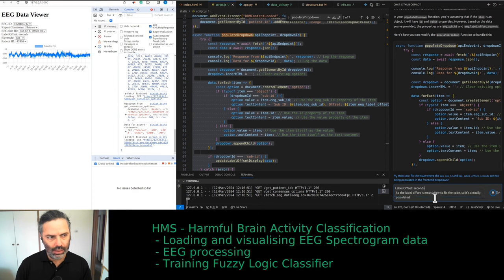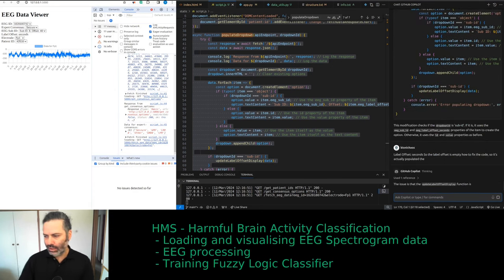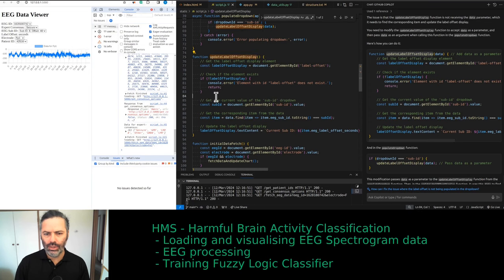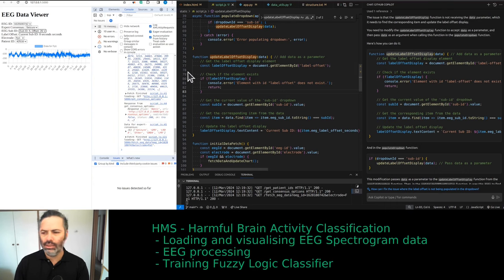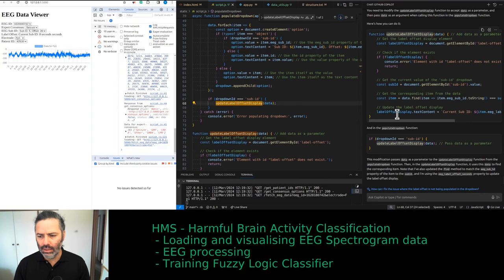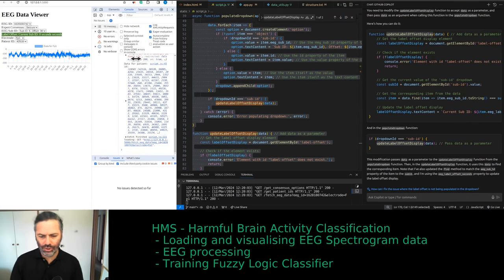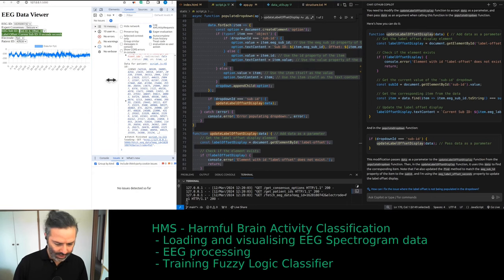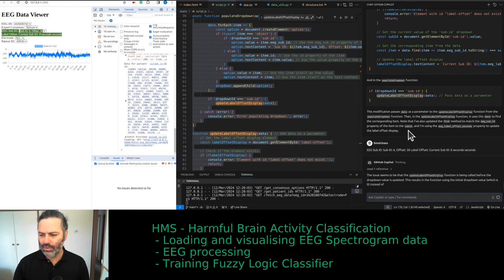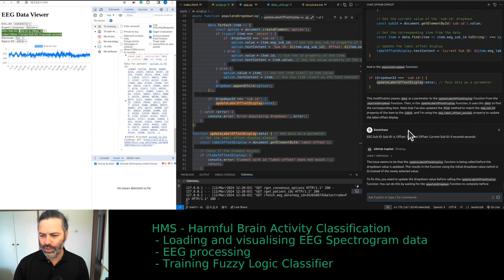For sub-label 8, the offset in seconds is 40. So we should always be plotting 50 seconds and using the offset. The label offset display is empty — need to fix the code so it's actually populated. Hopefully the AI understands the context. The update label offset display function should accept data as input. Also, the label offset display function is being called before the dropdown value is updated.